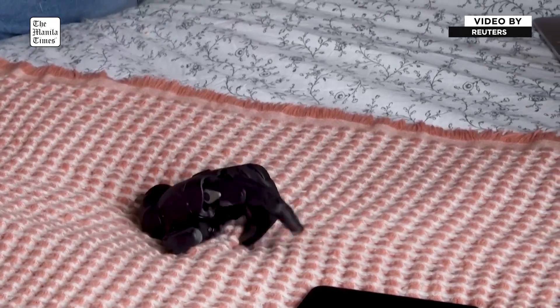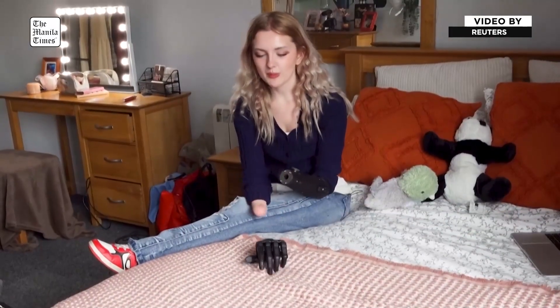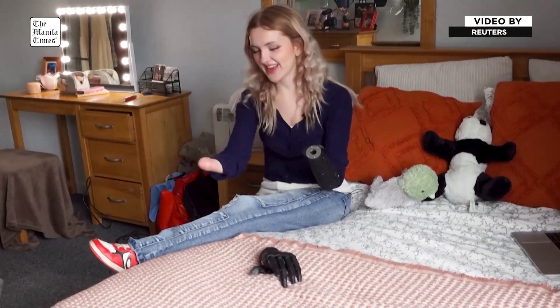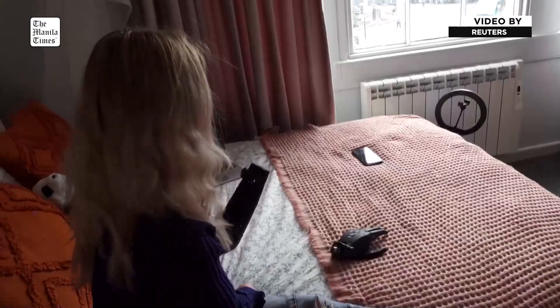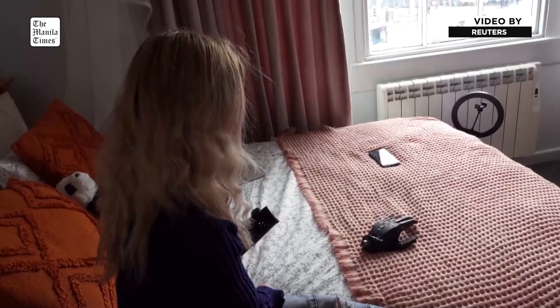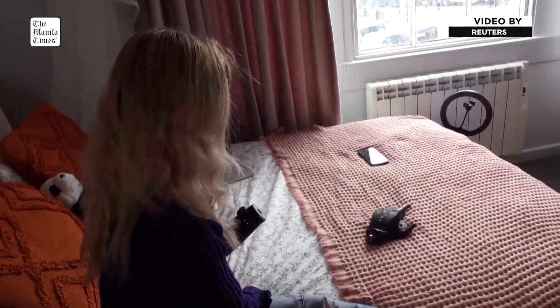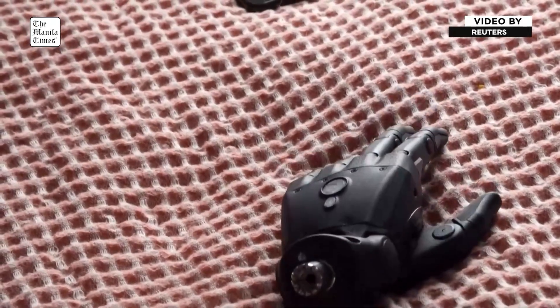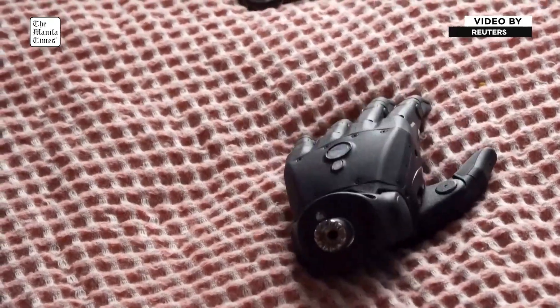Going for the phone — I'm literally operating it exactly the same way as if it was attached. You can just unplug the hand, and then clenching that same muscle: I just squeeze to close, flex to open. The hand can crawl away like it's got a mind of its own.